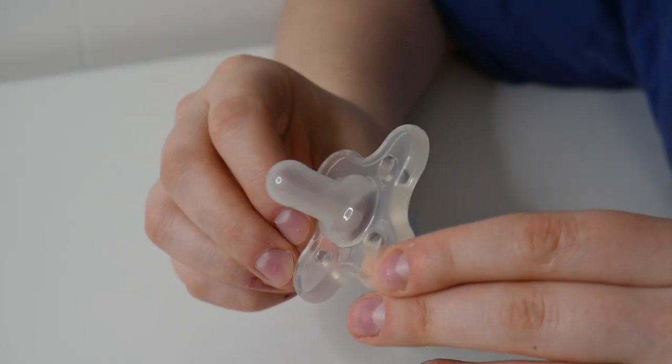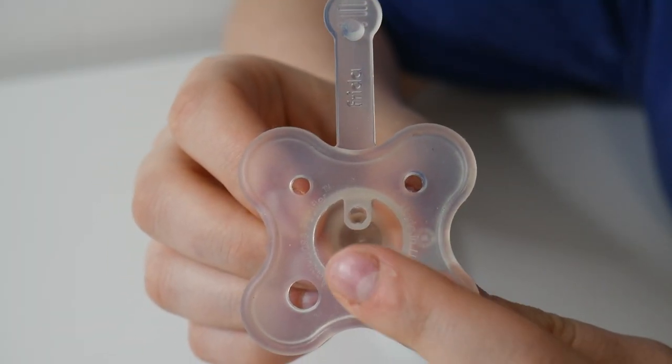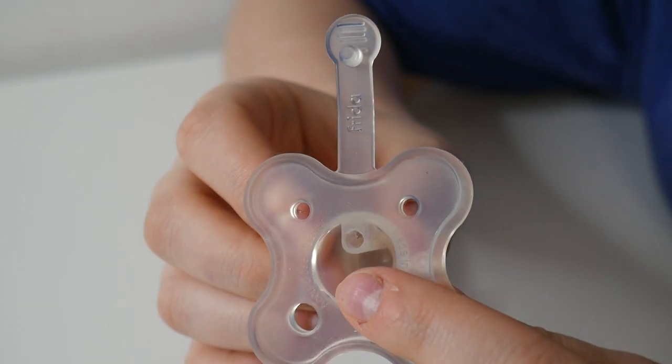First off, it comes with this clear pacifier. If you take a look at the back, there is this little hole right here. This is where your syringe is going to attach to.